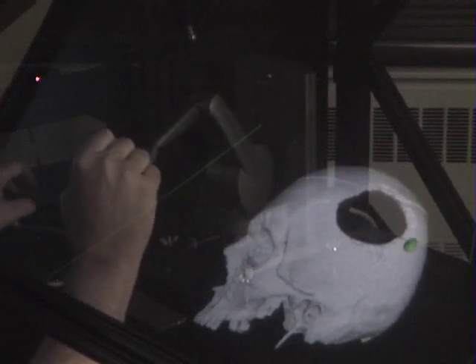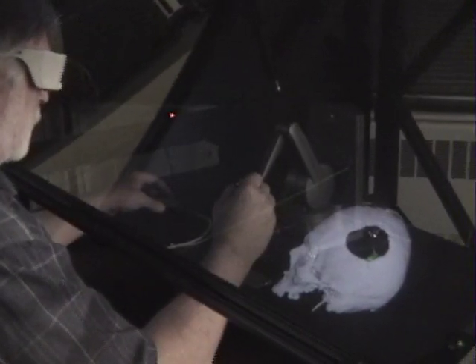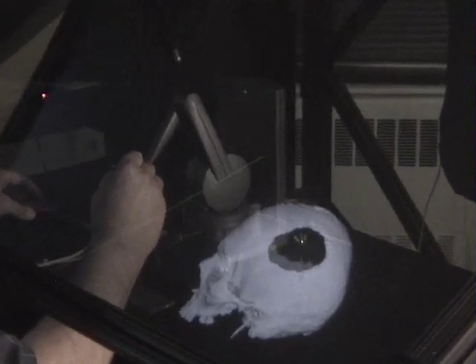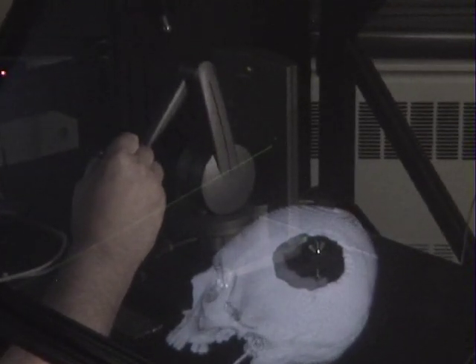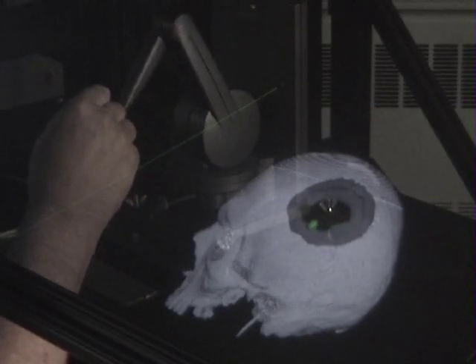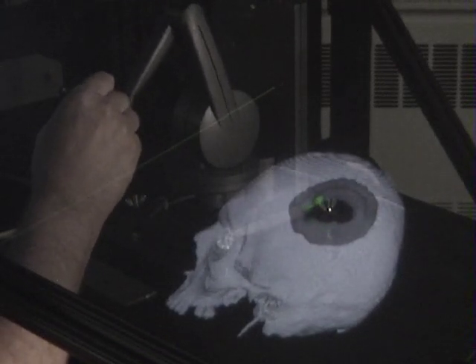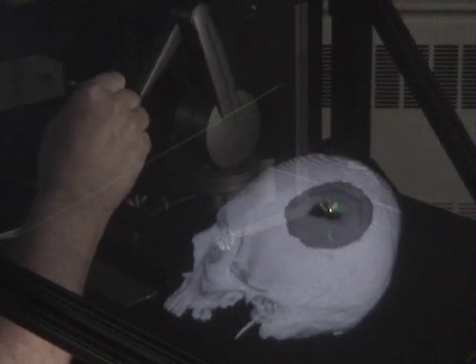This particular tool is called the add clay tool. I can add volume to the edges of the defect simply by pressing a button on the side of the stylus. As you can see, I can add multiple layers and essentially fill in the void very quickly.